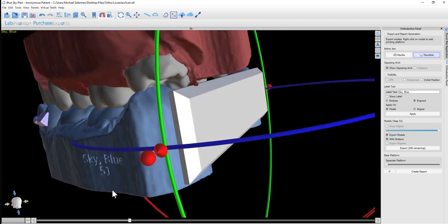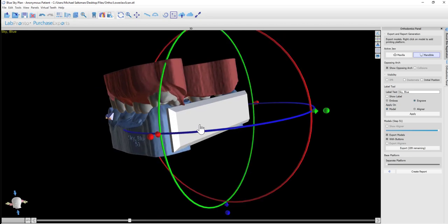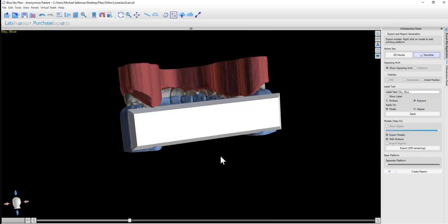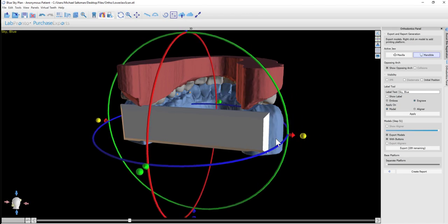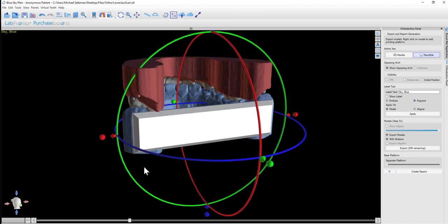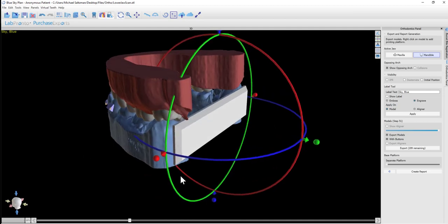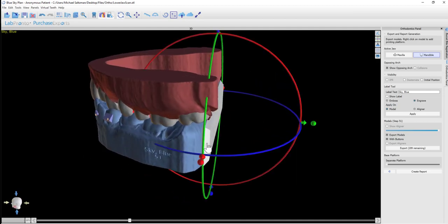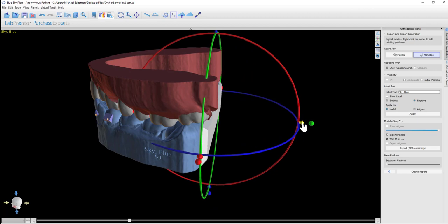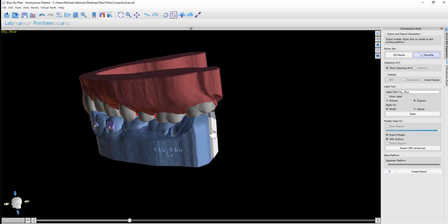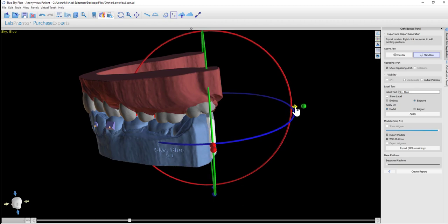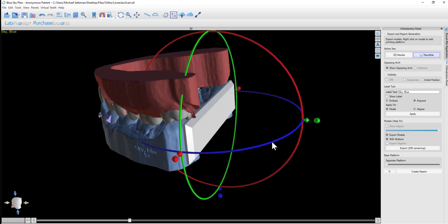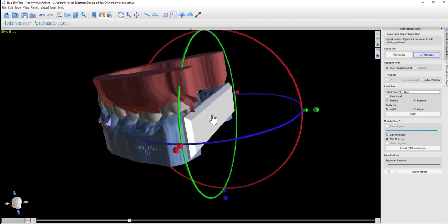Having a base is simple: right-click and choose Add Platform. We now have the platform added, and we could use the widget to fine-tune the sizing or the positioning. We want to make sure it doesn't protrude from either side and that there's enough contact between the model and the platform. We can make the platform wider by grabbing the dot and dragging it, and we could increase the intersection slightly by using the arrow.